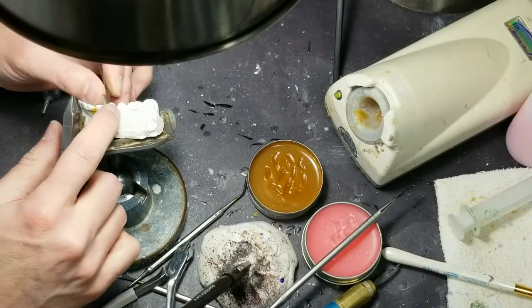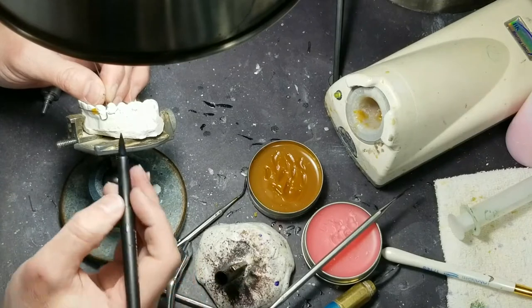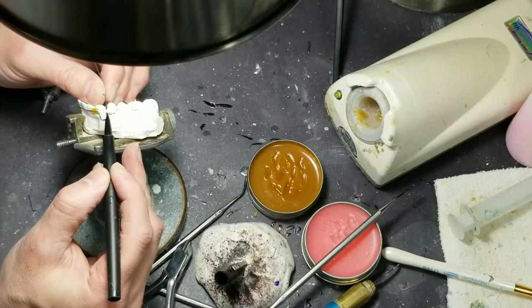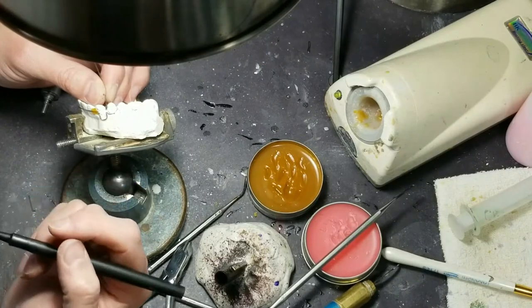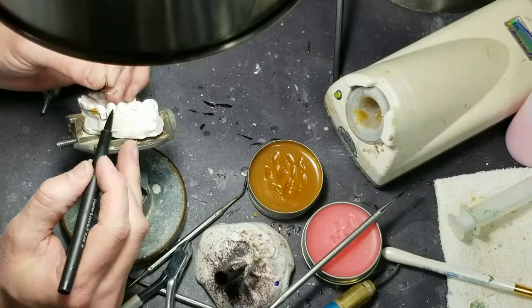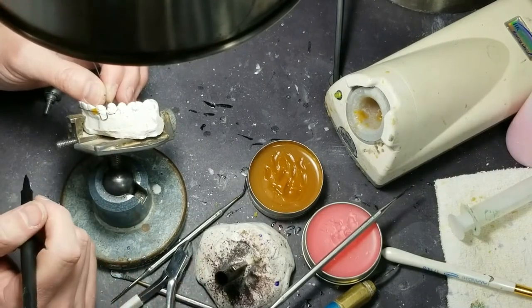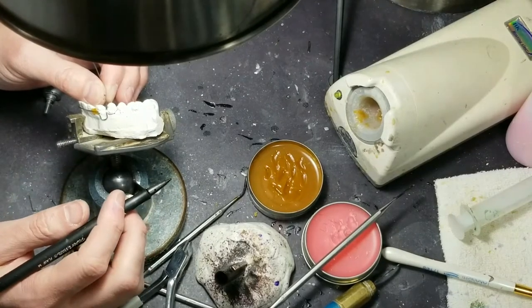Steve! So you can see, I've contoured it and I've made a 90-degree bend and I've gone parallel with this wire. This is something new I learned with the last lab I worked at and I really liked it — really simplifies the whole process. I used to bend the wire here, cross over 90 degrees and then wax it over here. But now that I use this Zap-it stuff — insert link to my video on Zap-it.